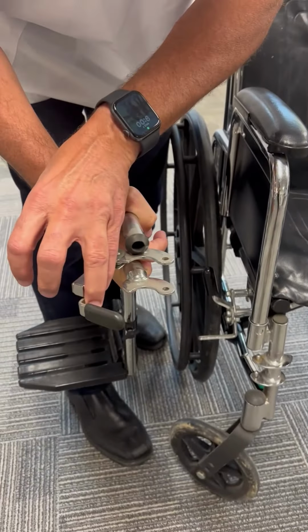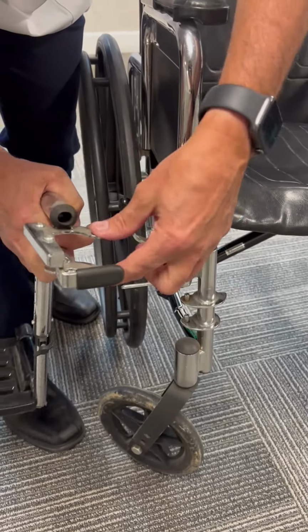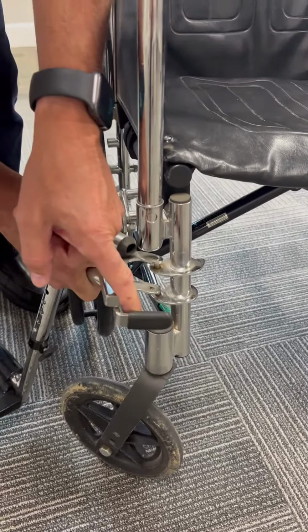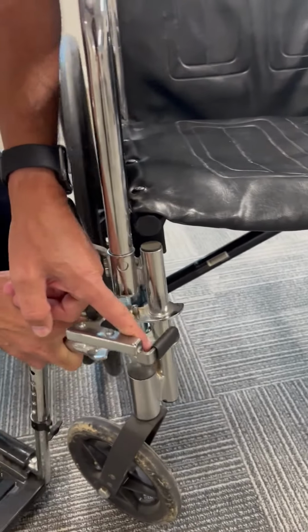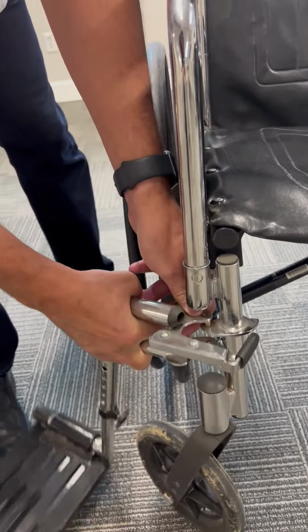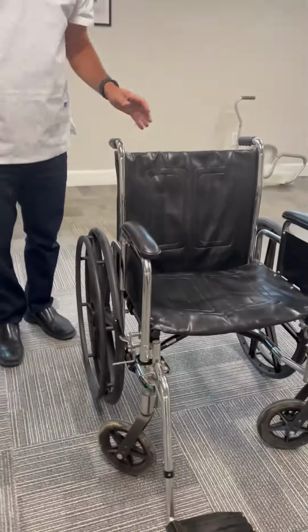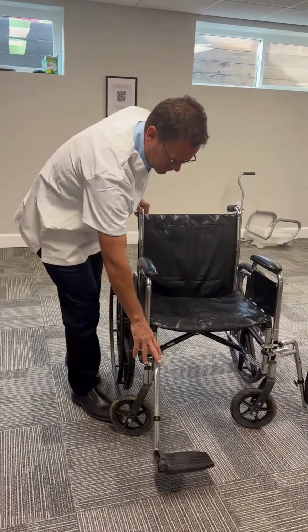What is difficult is you'll see two pins here, and you line up the top of these brackets with each one of those pins to place them. Once you line them up, they fall on easily, which is not demonstrated here. That's important. We would be removing those when we do a transfer.